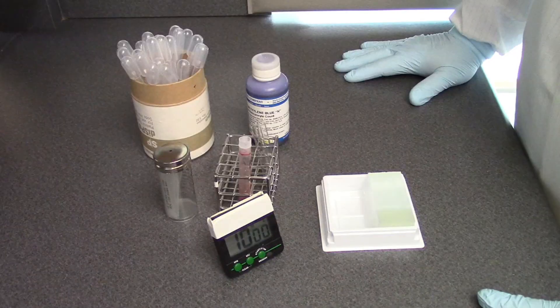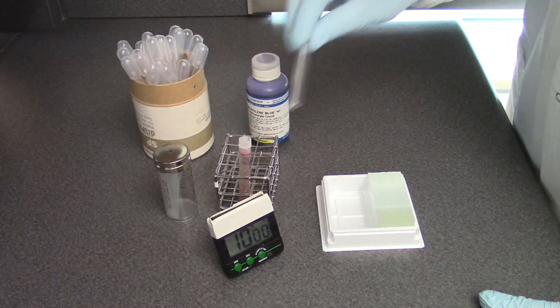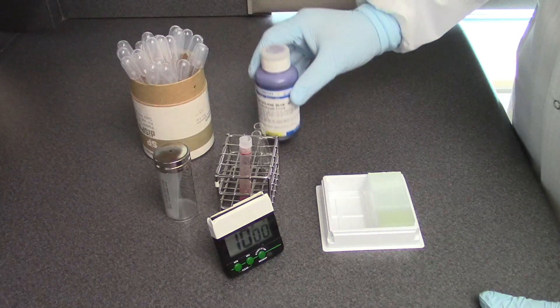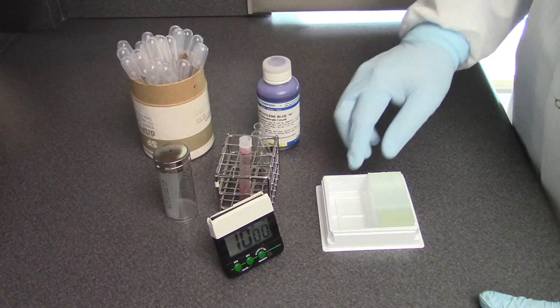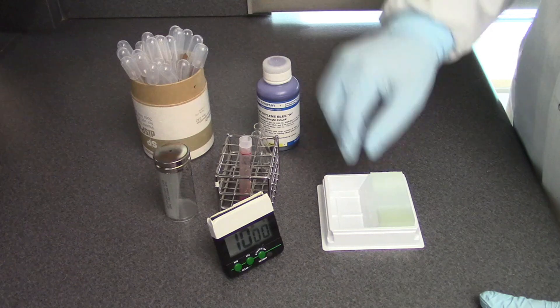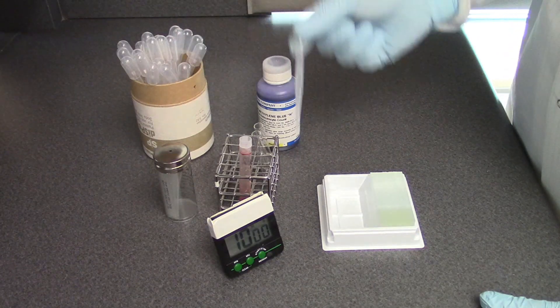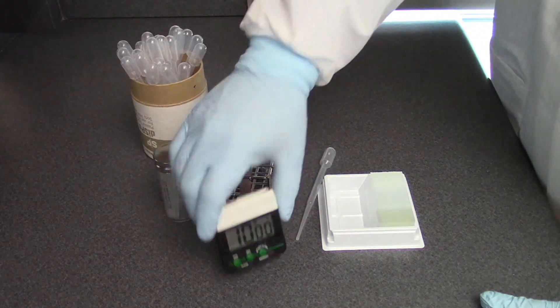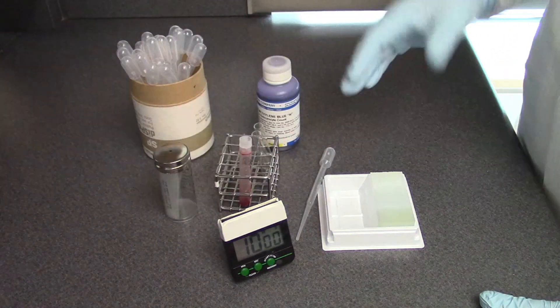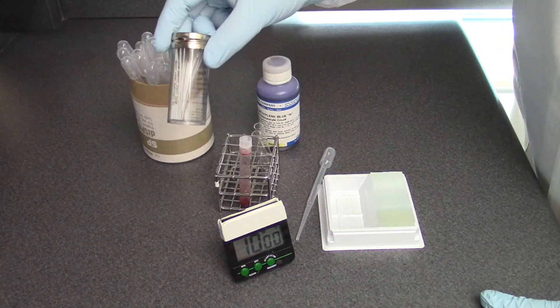For this procedure you will need 12 by 75 tubes, new methylene blue stain, glass slides, disposable pipettes, a timing device, and mylar capillary tubes to facilitate making a blood smear.